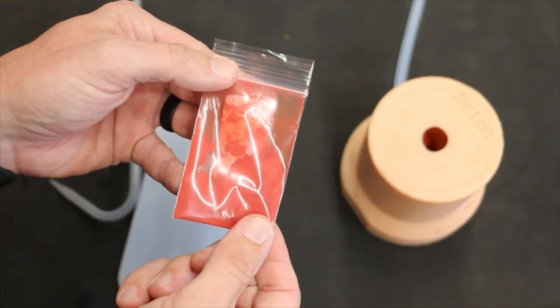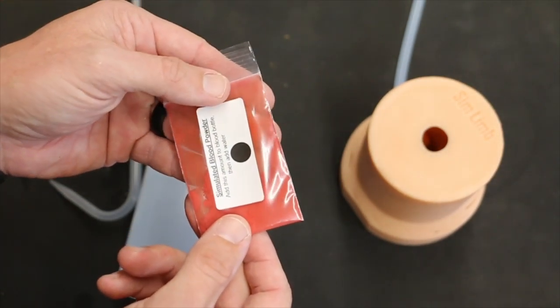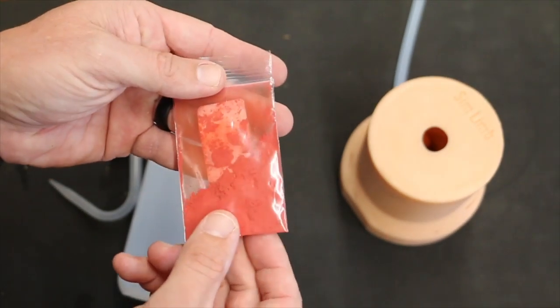So here's the powder we're going to use to make our fake blood, and this makes about 500 cc's of simulated blood.